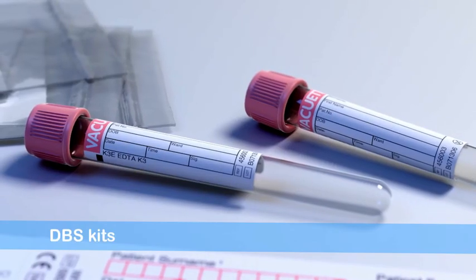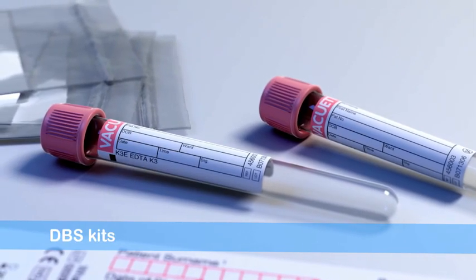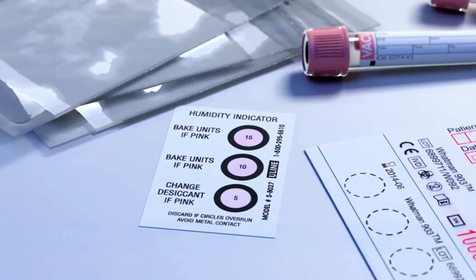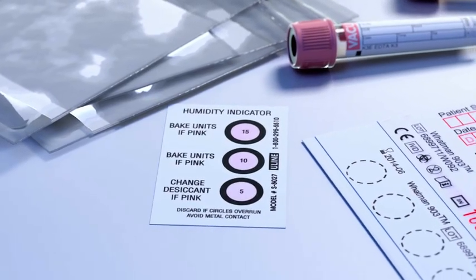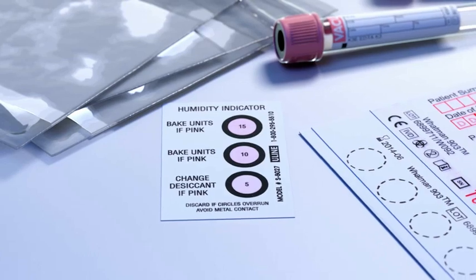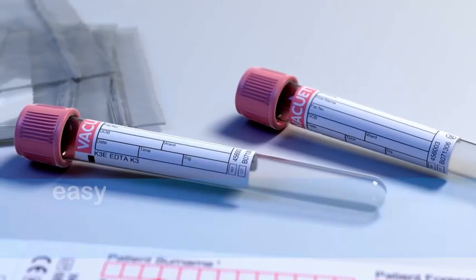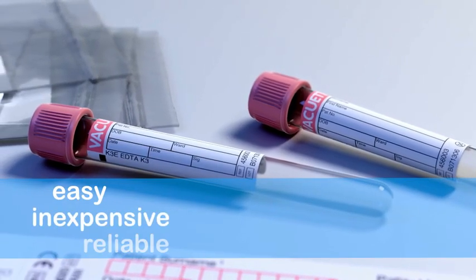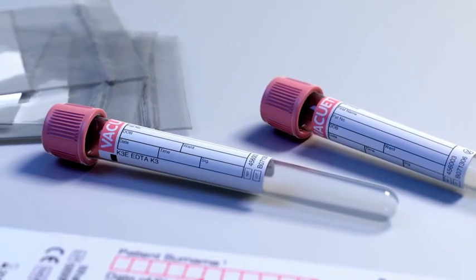Dried Blood Spot kits are fully funded by Sanofi Genzyme and made available to healthcare professionals that would like to test their suspected patients in Australia as a first-tier screening. DBS kits are easy to use and give reliable results if the following simple guidelines are followed.